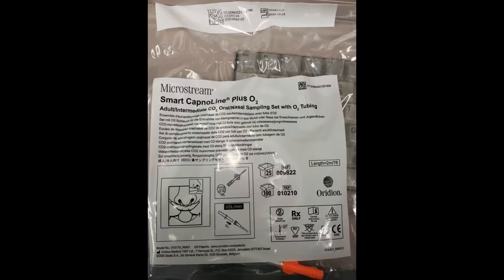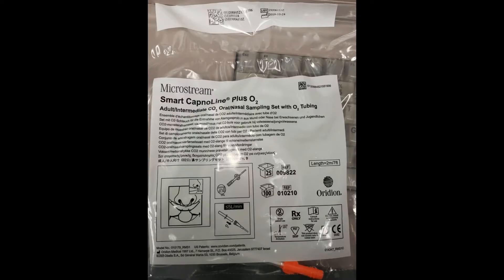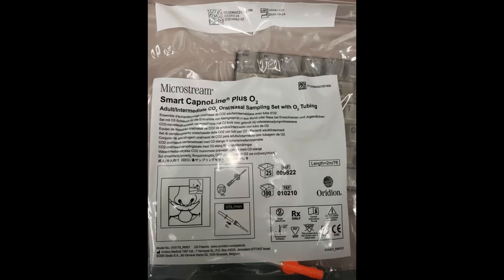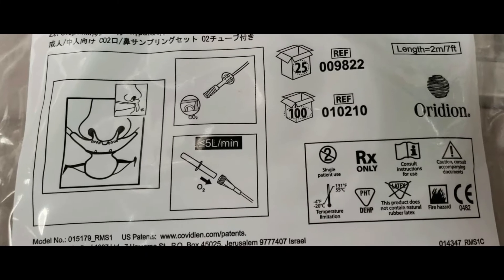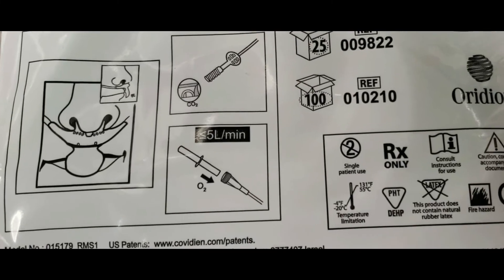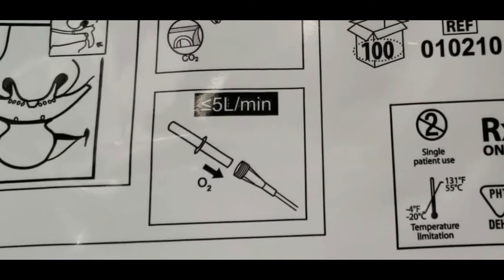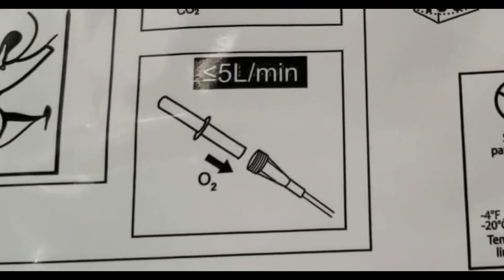The recent controversy, if you want to call it that, comes from the idea that you can't use the end-tidal CO2 sampling nasal cannula to do that, because as it says right here on the package, these are made for liter flows of five liters or less — and of course we need more.